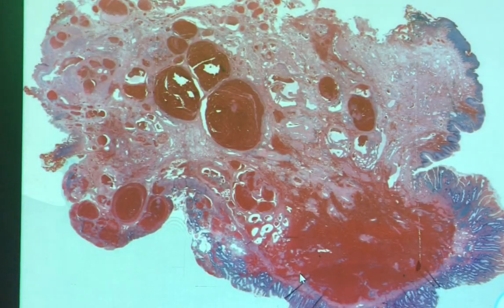And with that, we are going to move to our last case. And I think we have some slides that got mixed up here, but that's okay. So this is our last case. This is case 9, and I'm not going to beat around the bush too much.